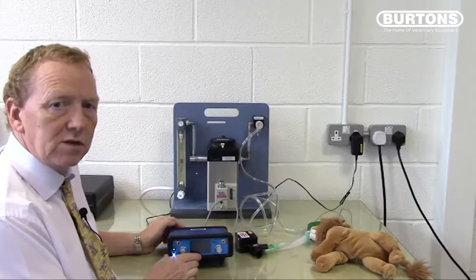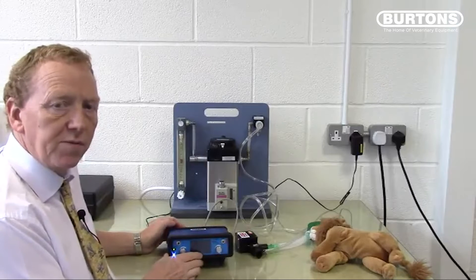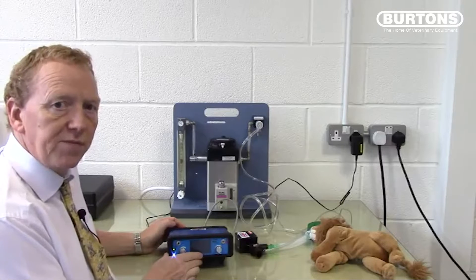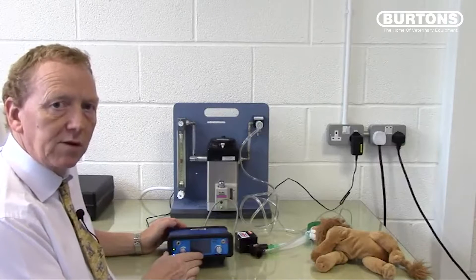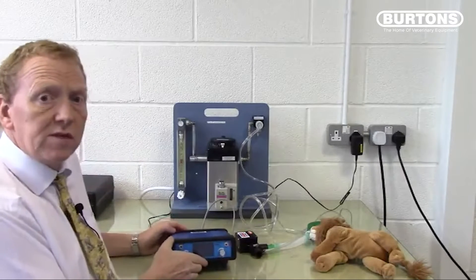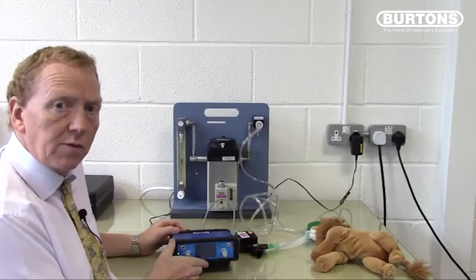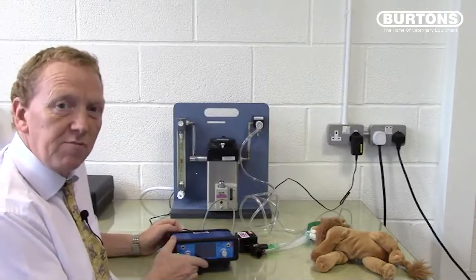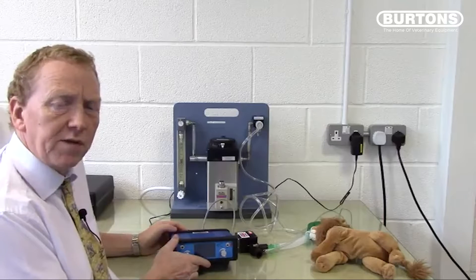This video describes the use and setup of the SAVO4 for small animals between 100g and 60kg. The SAVO4 is a very simple, easy to use small animal ventilator. It uses a standard T-piece configuration and basically functions as an automatic thumb.